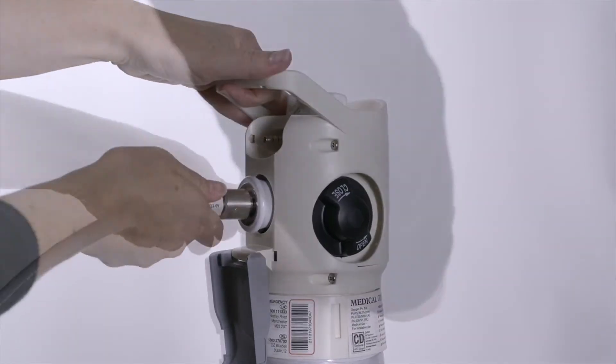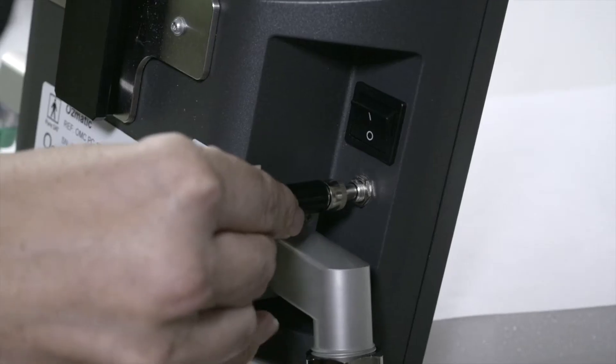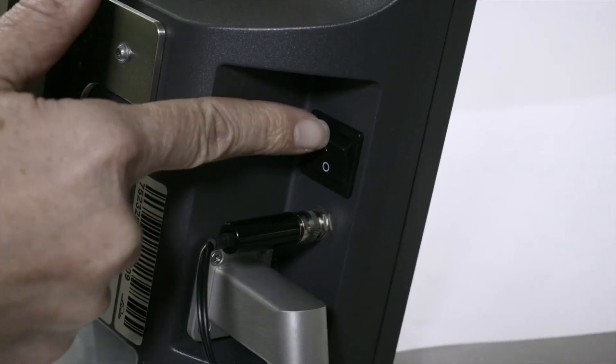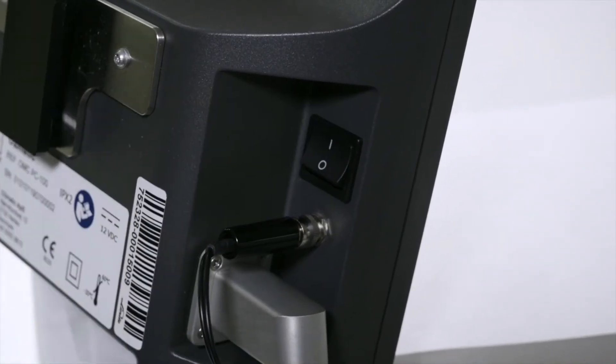Connect the oxygen source, power and pulse oximeter. Switch the power on at the back of the O2Matic.